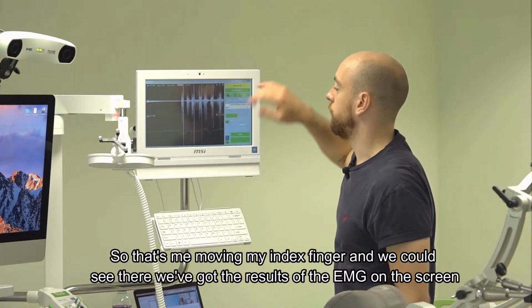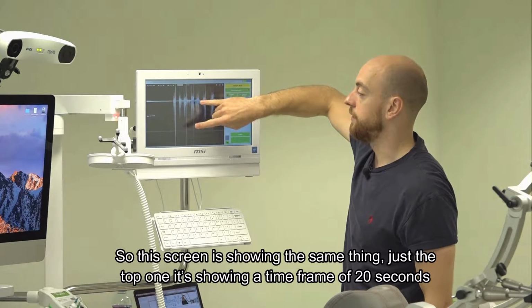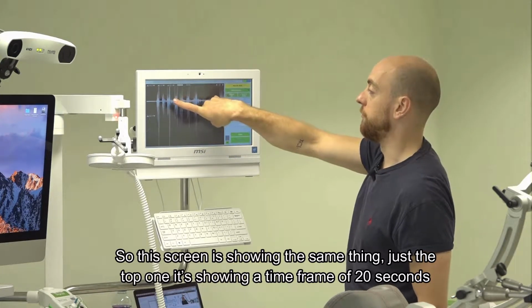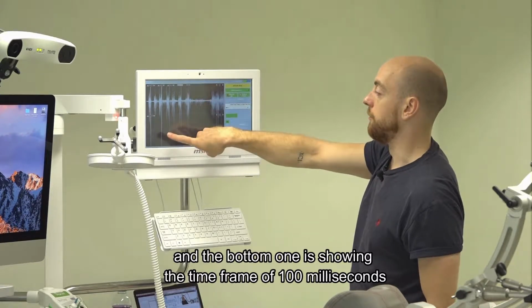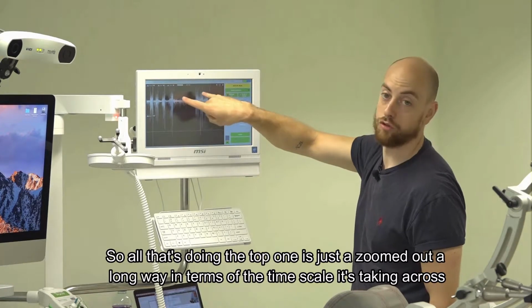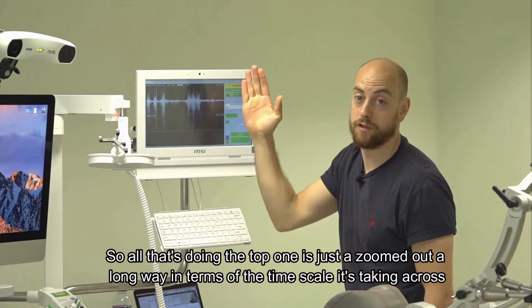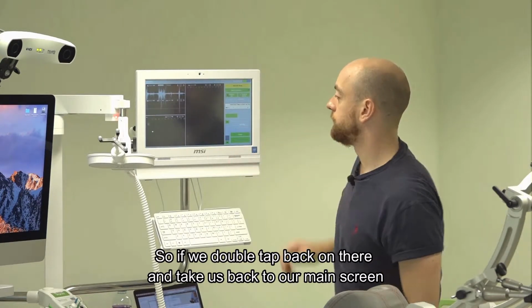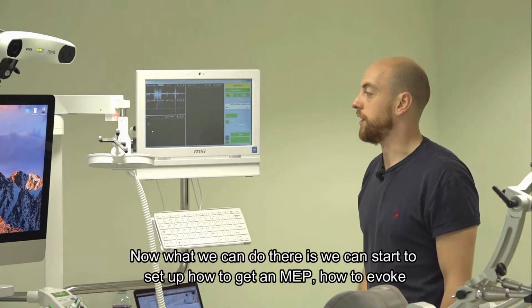This screen is showing the same thing. The top one is showing a time frame of 20 seconds, and the bottom one is showing a time frame of 100 milliseconds. So all that's doing is the top one is just zoomed out a long way in terms of the time scale it's taken across. So if we double tap back on there, it takes us back to our main screen.